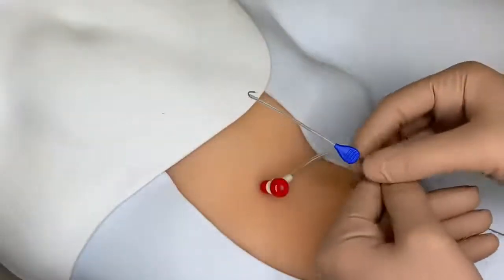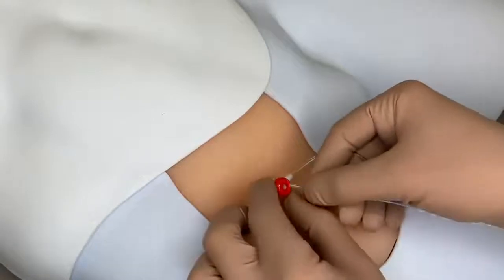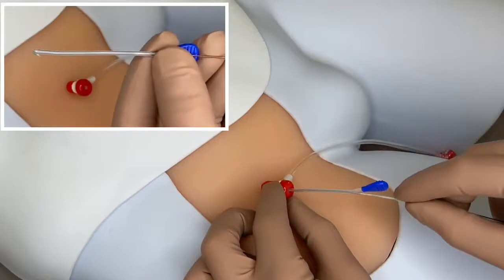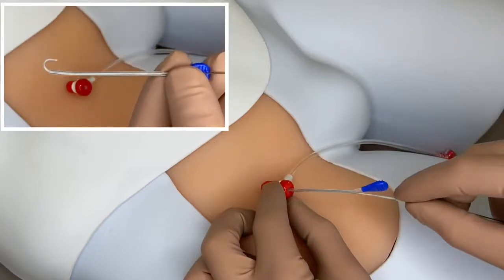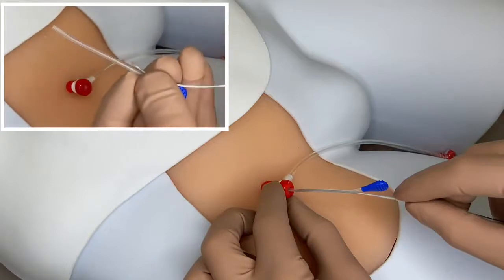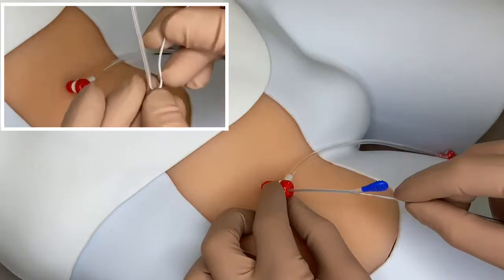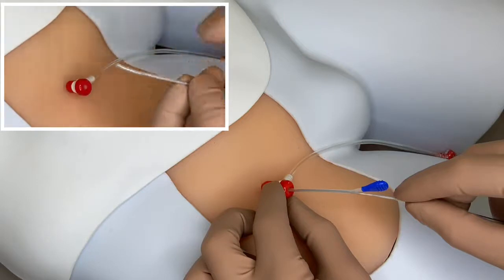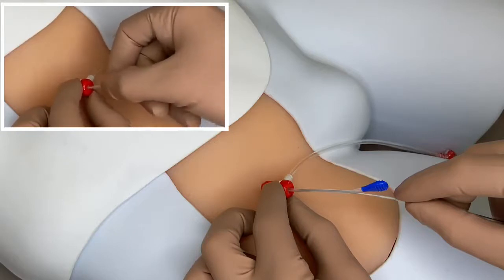Fly the J-tip straightener over the J-tip until it is completely housed within the tube. Insert the J-tip straightener into the valve of the sheath until a hard stop is felt. The J-tip straightener can be reused if necessary. Note the hard stop of the J-tip straightener at approximately two centimeters.